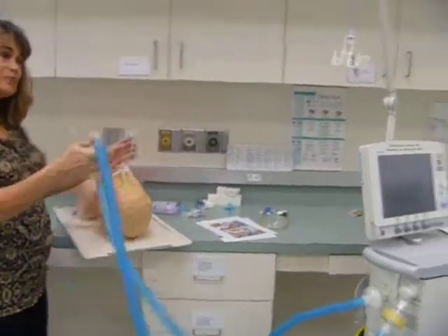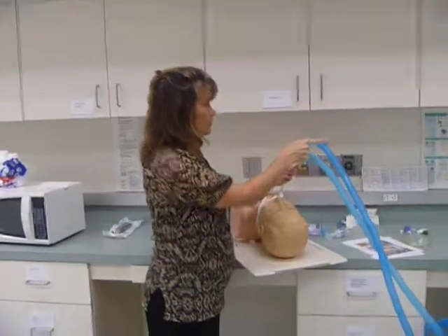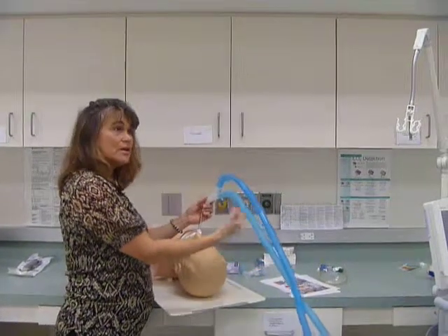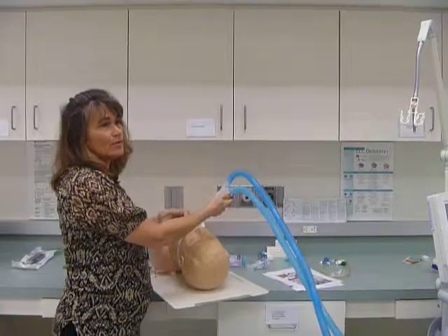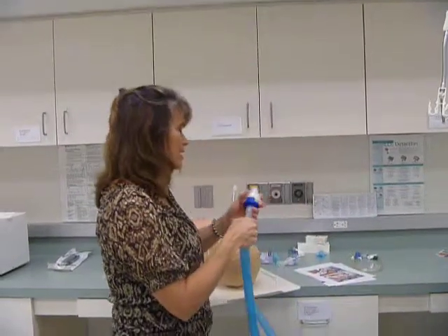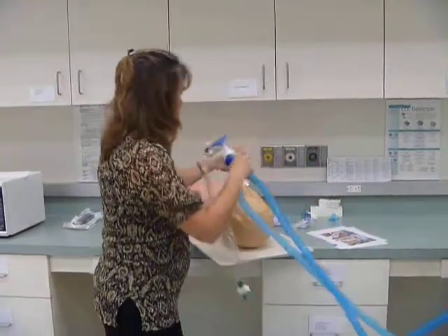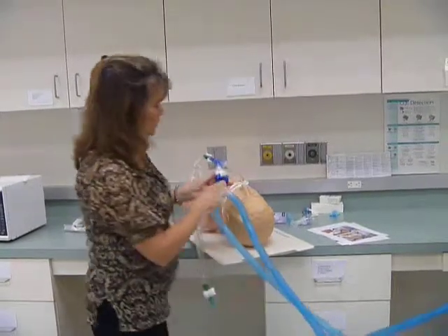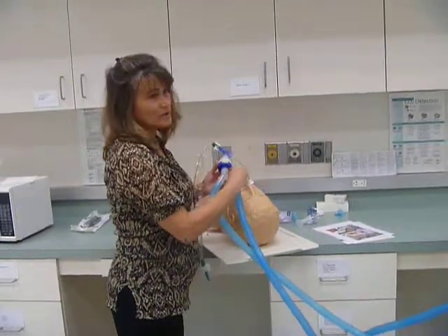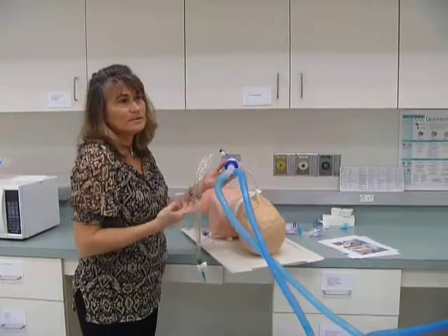All right, so we're going to attach the ventilator circuit to the endotracheal tube. And anything that we add between this fresh flow of gas and the exhaled gas is going to get rebreathed. Patient exhales. The next breath comes in, all the air that's in between is going to get rebreathed. For example, when we have a heat and moisture exchanger, this only adds a few mLs of dead space. All right, so now between the Y and the endotracheal tube, notice how we have some devices, and all of that is going to have air in it. So when the next breath gets delivered from the ventilator, all of this air that's in here will get redelivered to the lungs. So it's considered dead space.